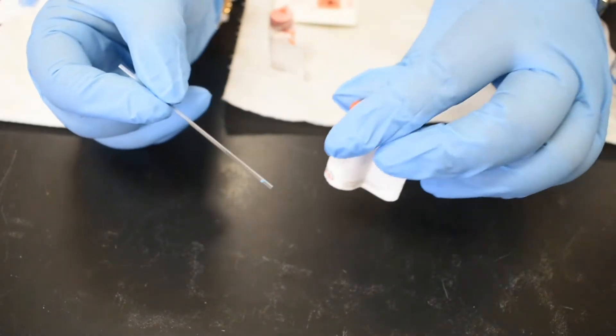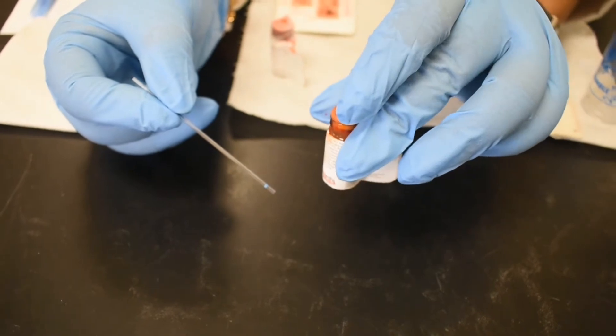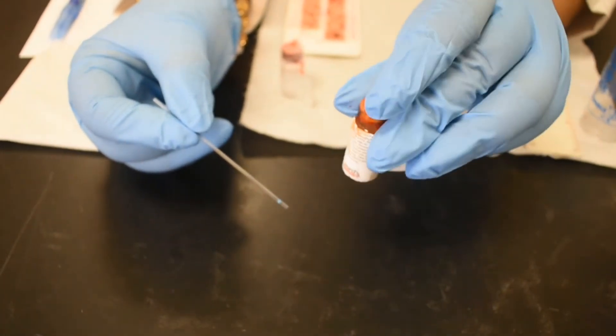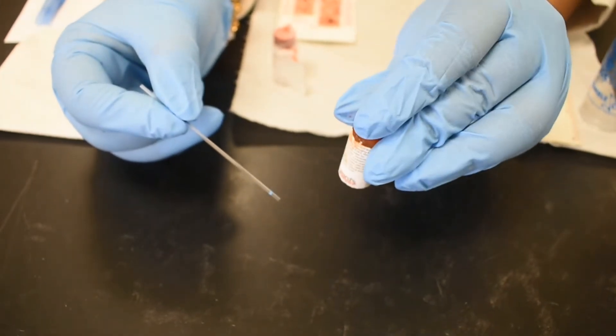The blood sample, before you start, gently shake the vial a few times. Remember, gently shake it.